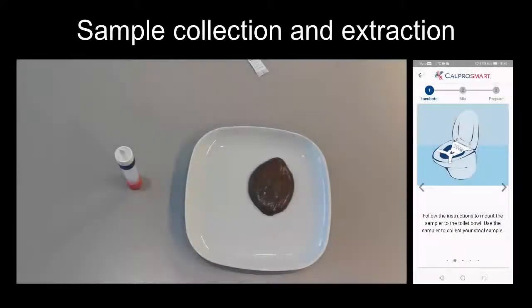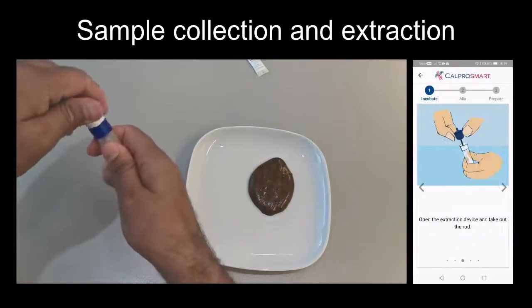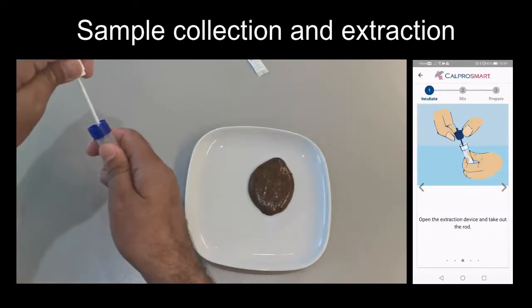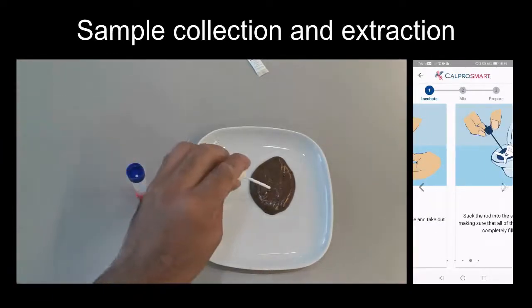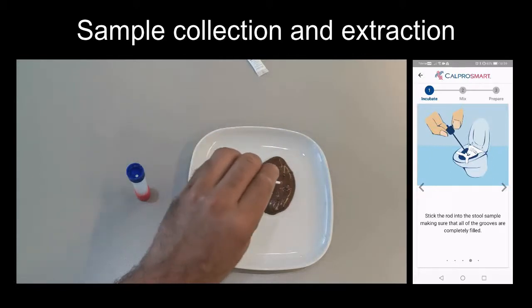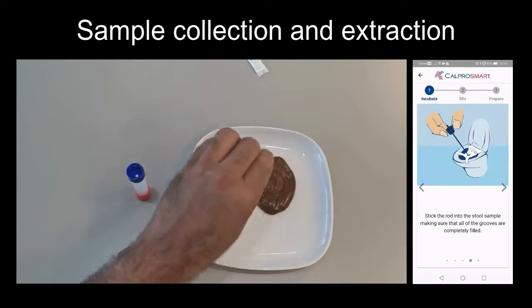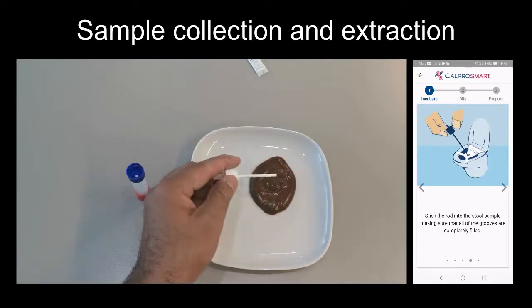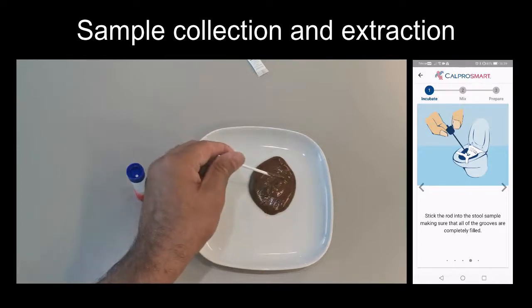The very first step of the CalproSmart self-test is the sample collection and extraction. In order to collect the stool sample that you need for running the CalproSmart self-test, use the sampling rod that is in the extraction device. Make sure to fill up the 2 grooves on the sampling rod from different places of the stool sample. If the sample is soft, you might use the sampling rod to stir around to collect the sample, and if it's hard stool, you might need to scrape it to do so, but do so from different spots.